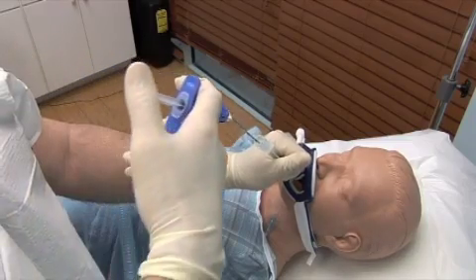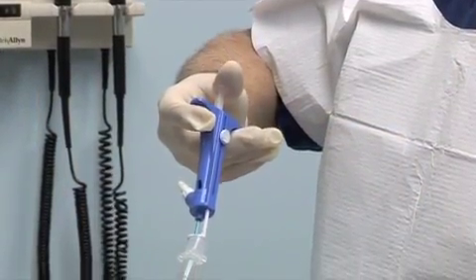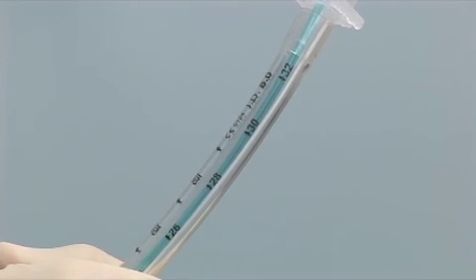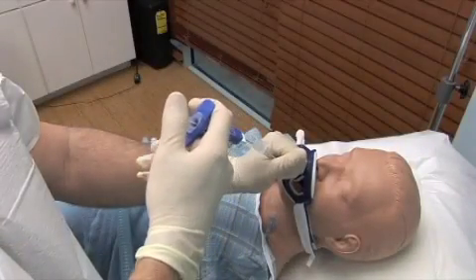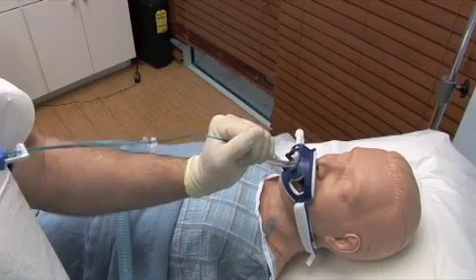Stabilize the endotracheal tube with one hand. With the other hand, grasp the CAM Rescue Cath handle and depress the syringe plunger until some resistance is felt. May require inflation with less than 3 cc of air. Ensure that the CAM Rescue Cath depth of insertion within the endotracheal tube does not shift during balloon inflation. Withdraw the CAM Rescue Cath completely from the endotracheal tube.